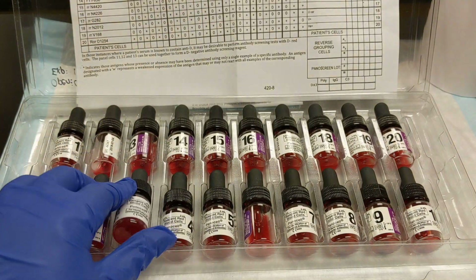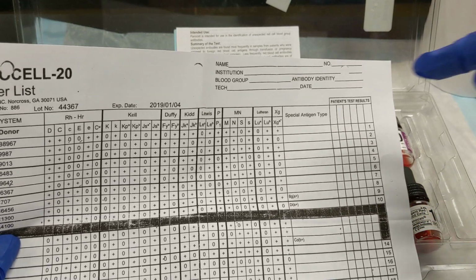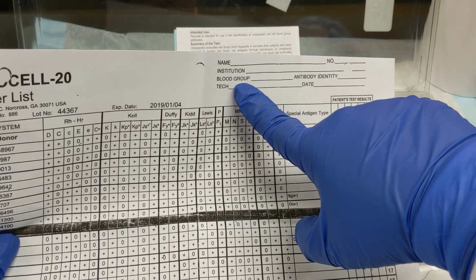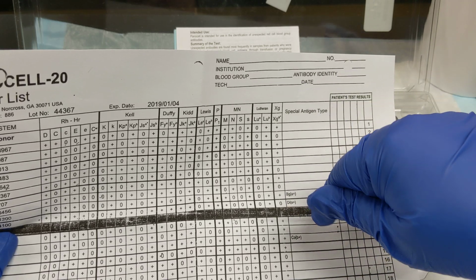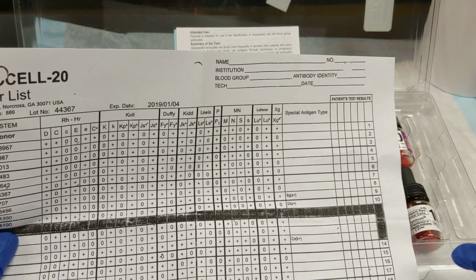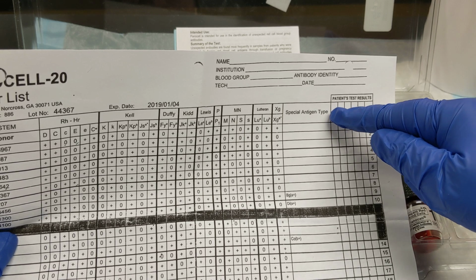on this sheet. So a little more explanation about this sheet. This is where you're going to write down your patient information. So you want to put your patient name, medical record number, children's hospital, their blood type, and once you're finished figuring out what the antibody is, you write the antibody result at the top, your initials, and the date that you did the testing. So in the result columns, it has everything empty right now. You are supposed to write in.